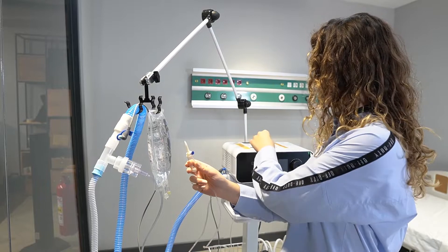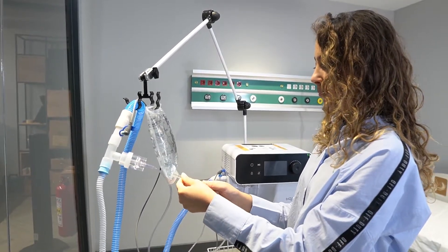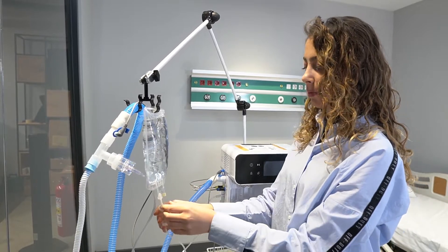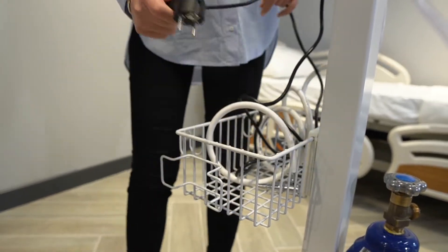The connection with the chamber is provided, and the power cable is inserted into the plug socket as designated.